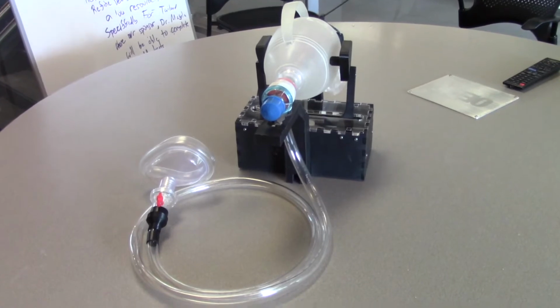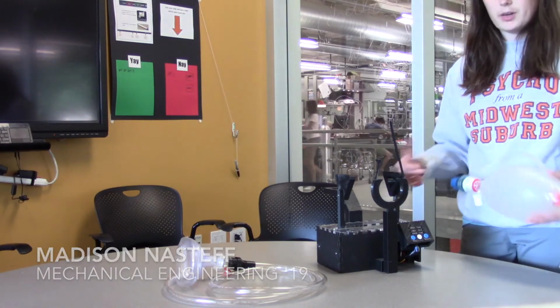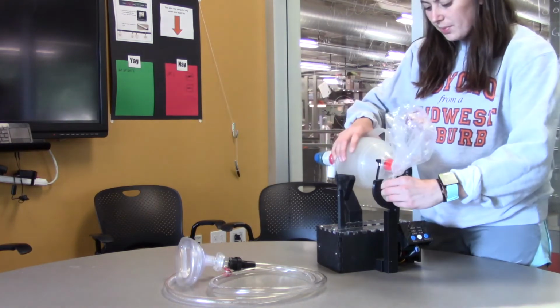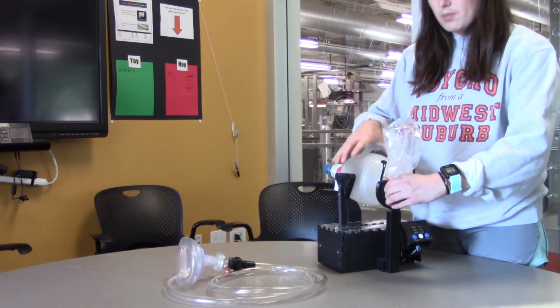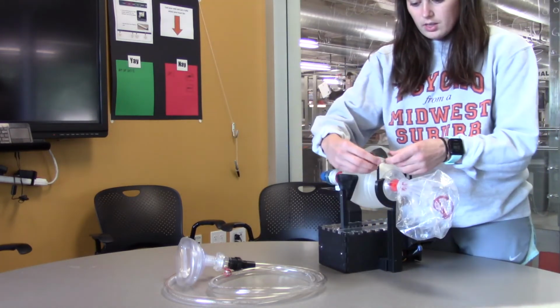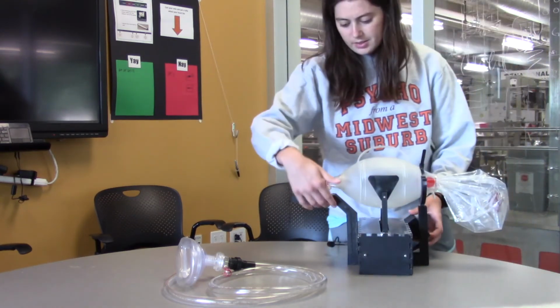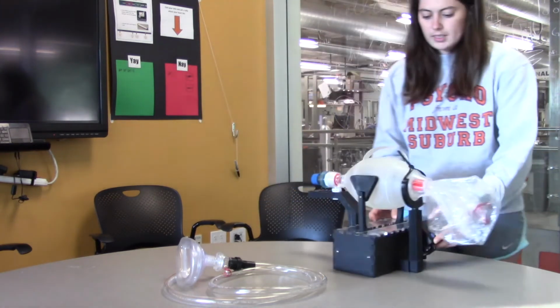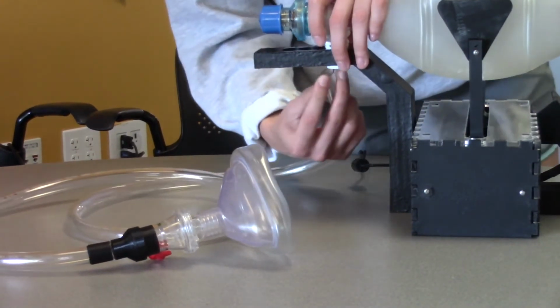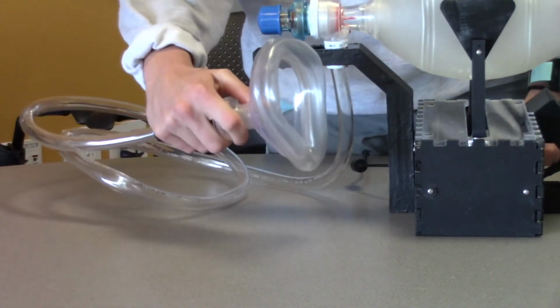And now we will go through how the device works. So the first step in our process is attaching the bag valve mask to our device. In order to do so, we have a back attachment and a front attachment. So you simply put the bag in, you have to squeeze it a small amount to get it inside the compression, and then you snap the back on like so. You attach it like this, and then the front will slide into one of these 4 holes. So our device is adjustable for all types of bag valve masks. Once you've attached the bag valve mask, you attach this tubing to the bottom, and then this part will go off into the patient's airway.